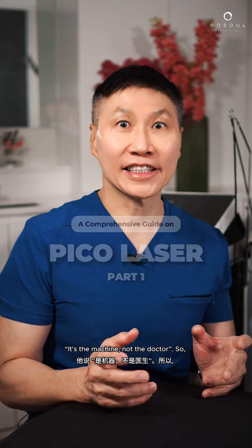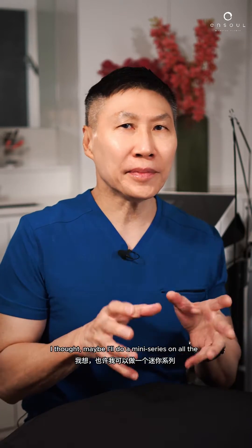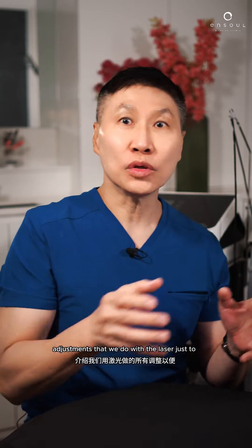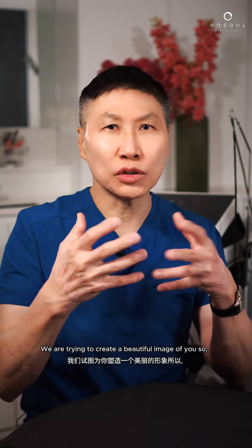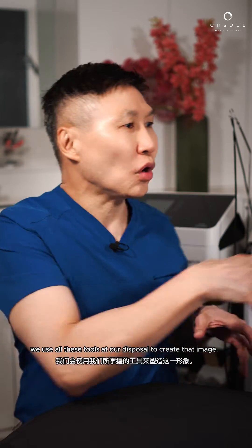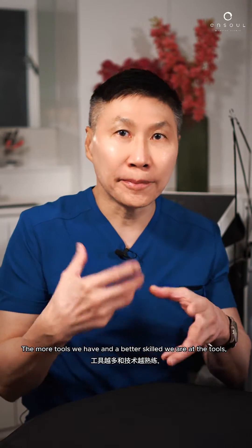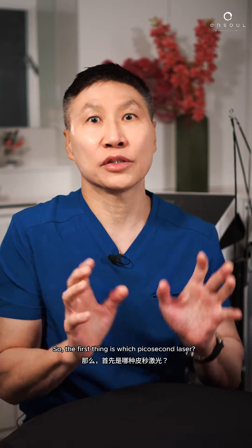A viewer posted a comment: it's the machine, not the doctor. So I thought maybe I'll do a mini-series on all the adjustments that we do with the lasers just to create a good result. We are trying to create a beautiful image of you, so we use all these tools at our disposal. The more tools we have, and the better skilled we are at the tools, the better the results.